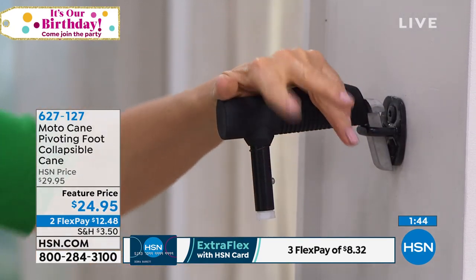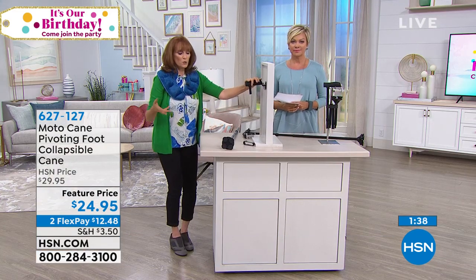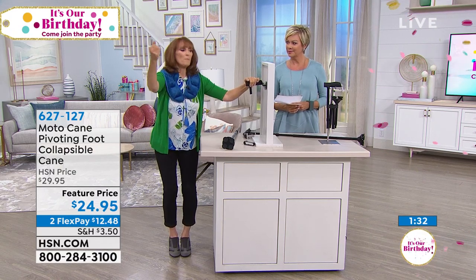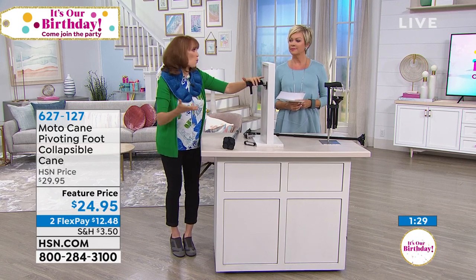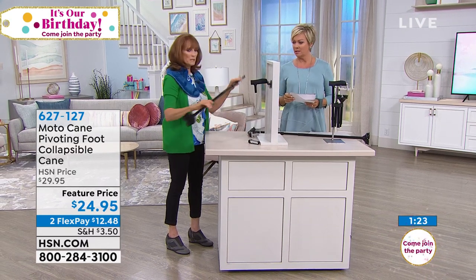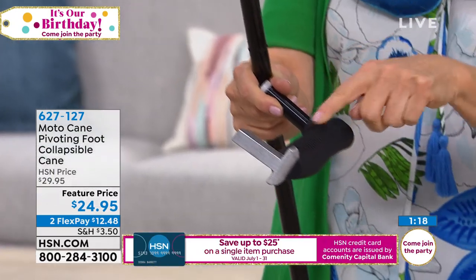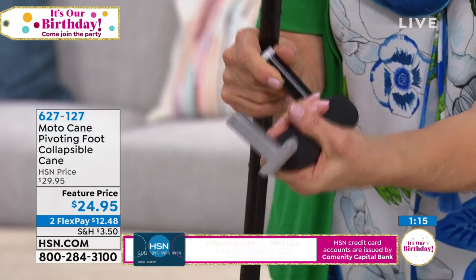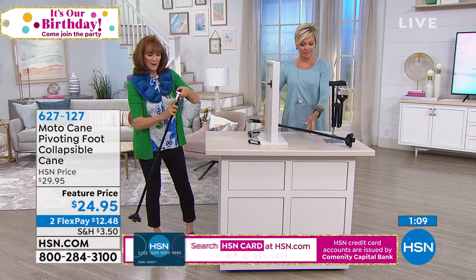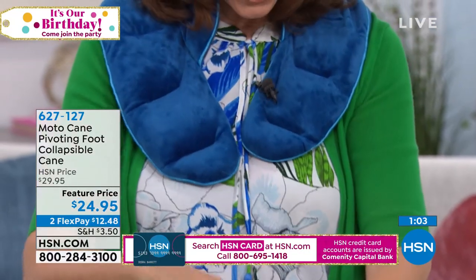You put the beak into the striker plate, and now you have something to push against to get out of your seat without help. Traditionally you'd swing both feet out — you can use the car assist to get that second foot out and then lift your weight to stand. The beak is made of magnesium alloy — super strong — and the cane itself is aluminum. The handle is rubberized with a great grip so you feel really secure.